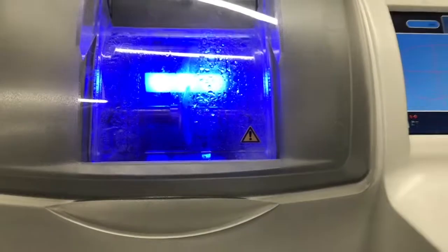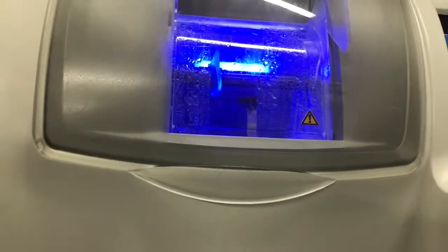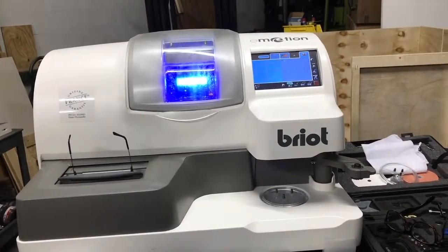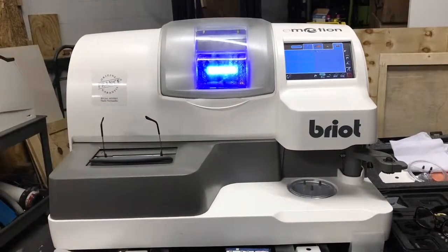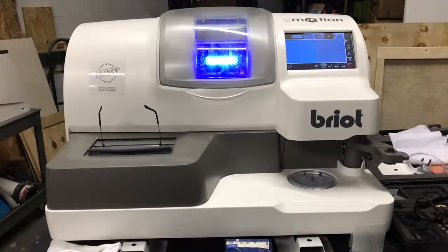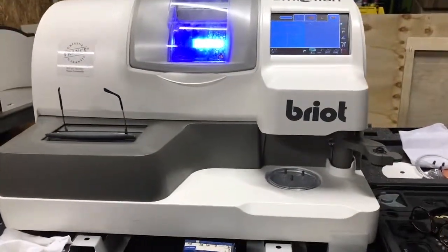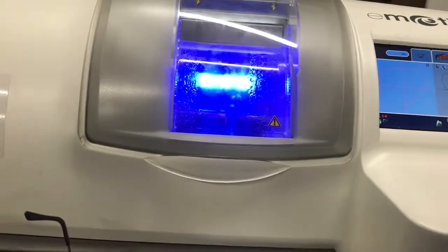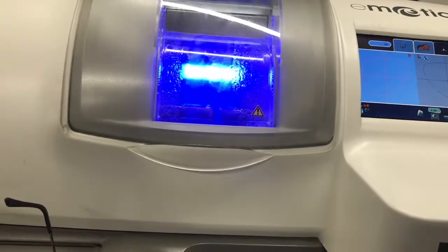The lens came out for re-testing the curve — inside, outside. Now it's ready for beveling. It has two solenoids, so that's the crack you hear — it opens one first and then the second.